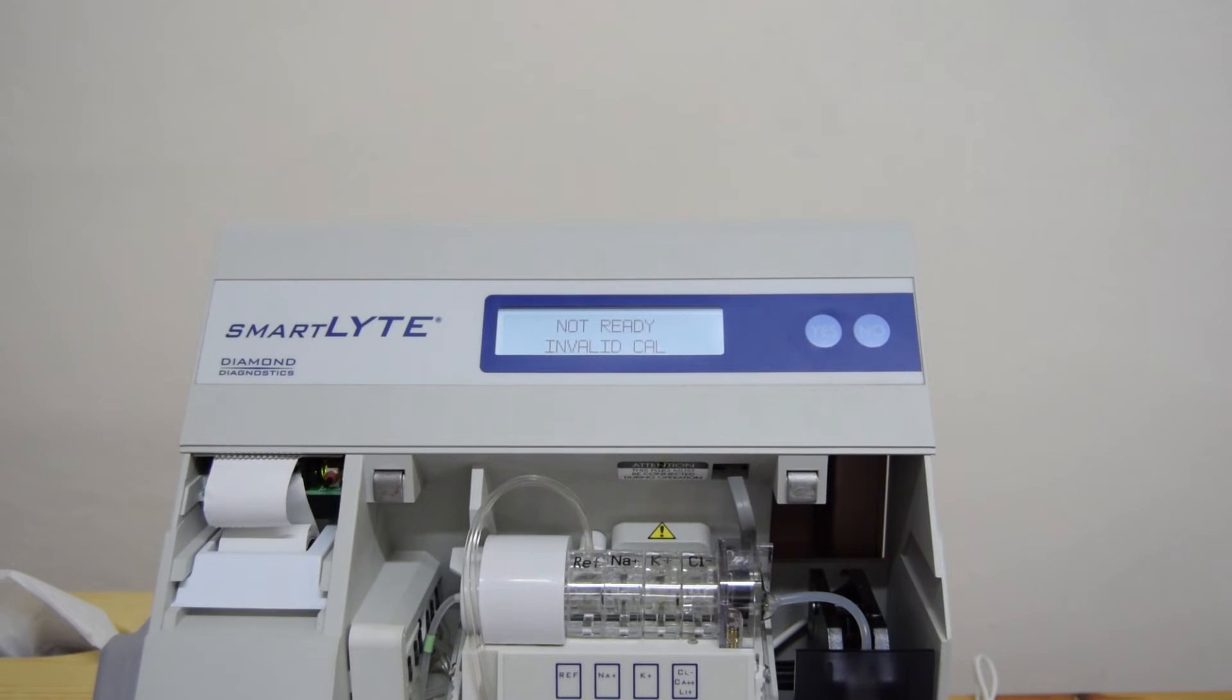Perform kalibrasi dulu sebelum kita melangkah untuk melakukan kontrol atau pengukuran dengan pasien. Untuk memastikan kalibrasi kita sukses terlebih dahulu, kami merekomendasikan untuk melakukan pengecekan standar A, B, dan C. Cara melakukannya seperti ini.